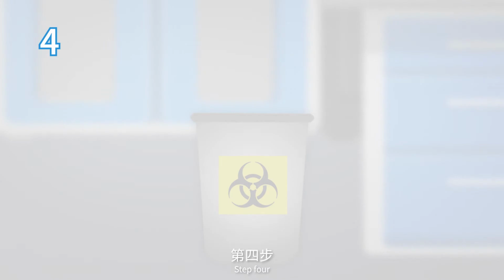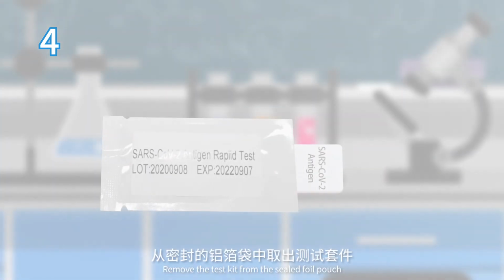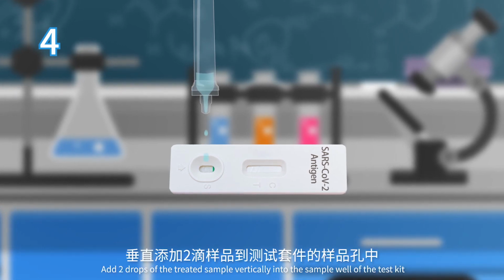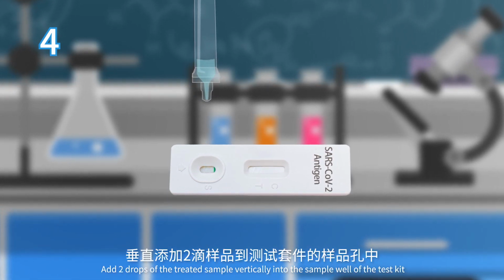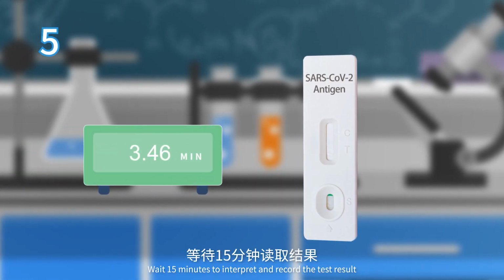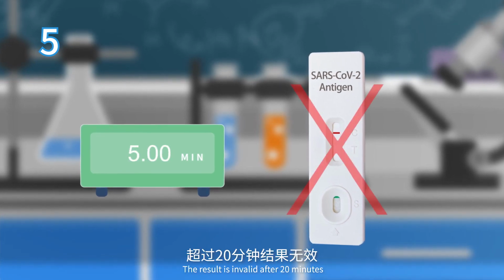Step 4. Cover the extraction tube with its dispensing tip. Remove the test kit from the sealed foil pouch. Add 2 drops of the treated sample vertically into the sample well of the test kit. Step 5. Wait 15 minutes to interpret and record the test result. The result is invalid after 20 minutes.